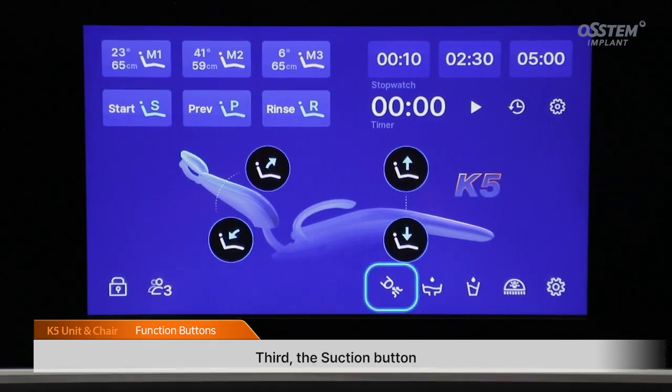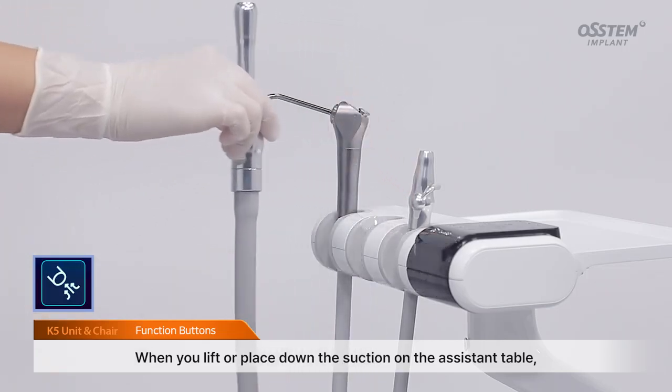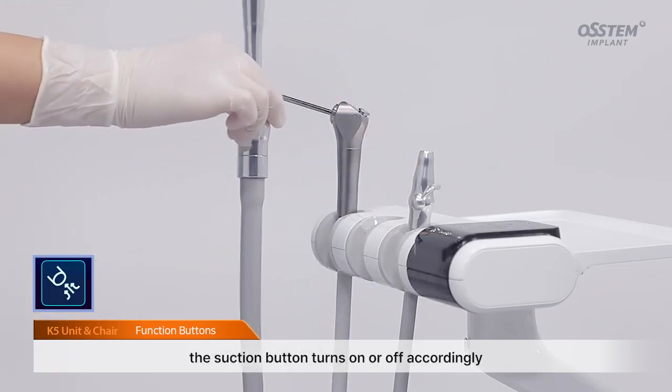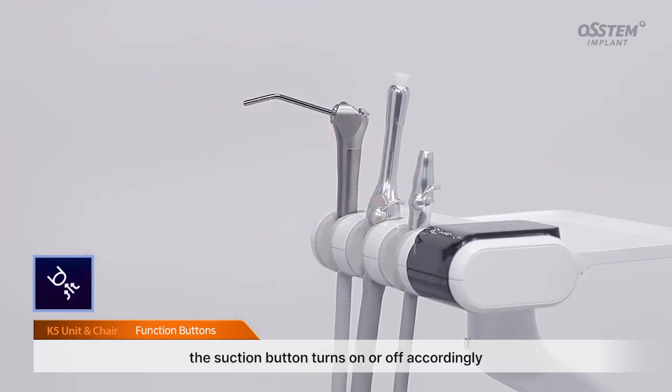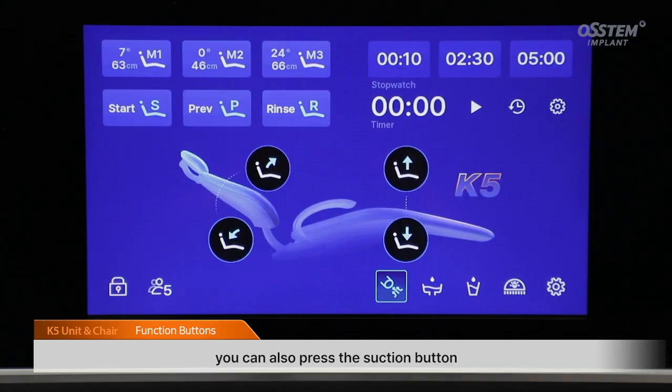Third, the suction button. When you lift or place down the suction on the assistant table, the suction button turns on or off accordingly. For units equipped with the K5 auto suction function, you can also press the suction button while the suction is removed from the holder to manually turn the suction off or back on.